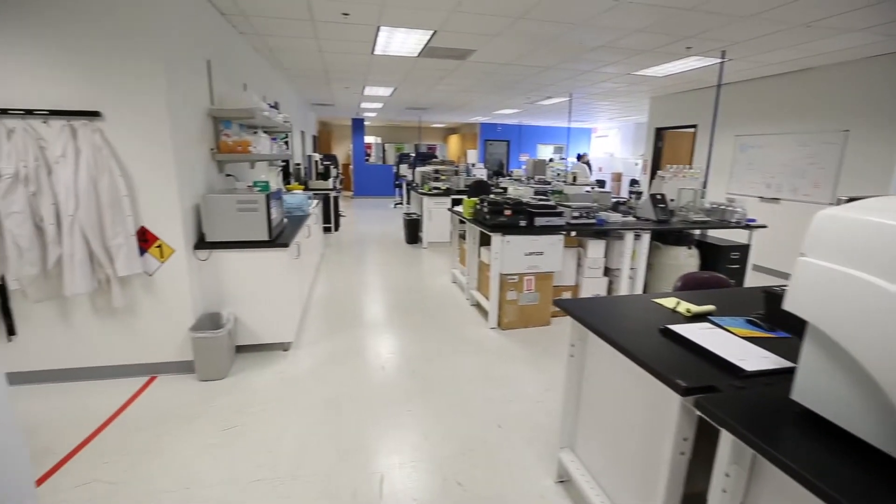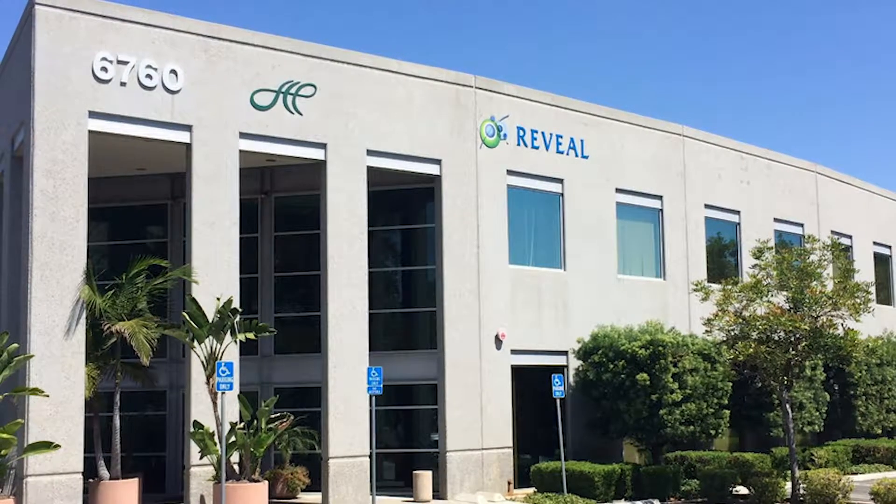By combining a traditional histopathology lab and a computational team, Reveal Biosciences has set itself apart from the competition.